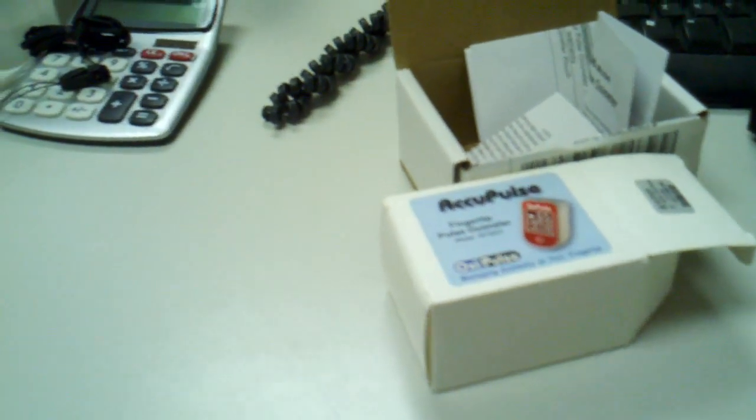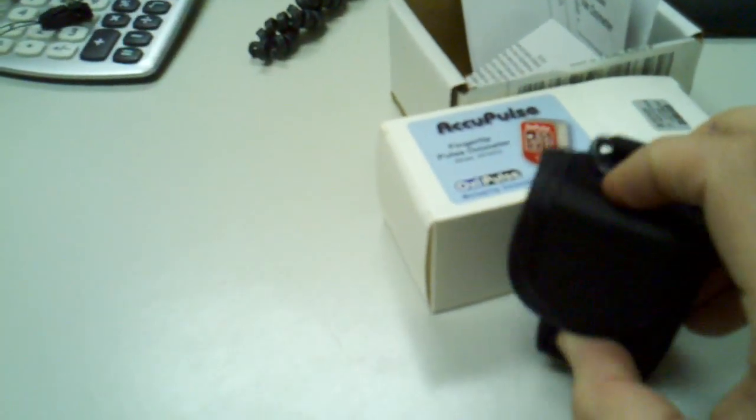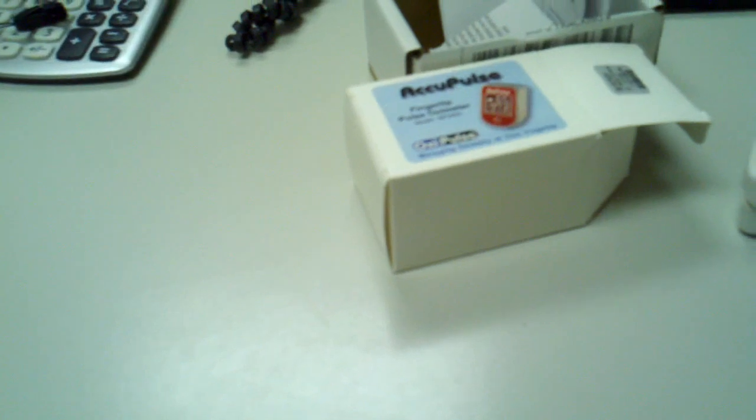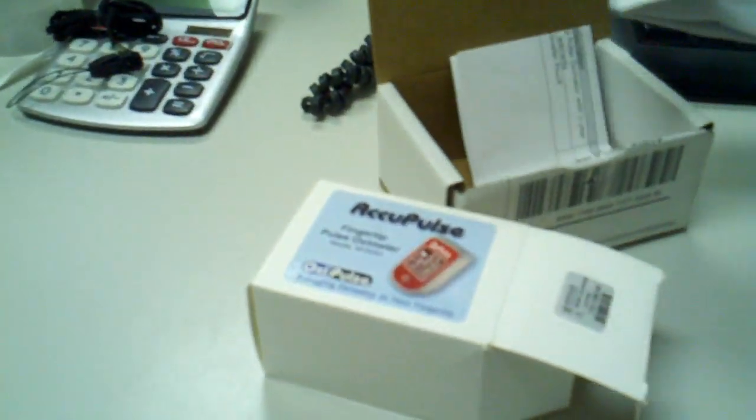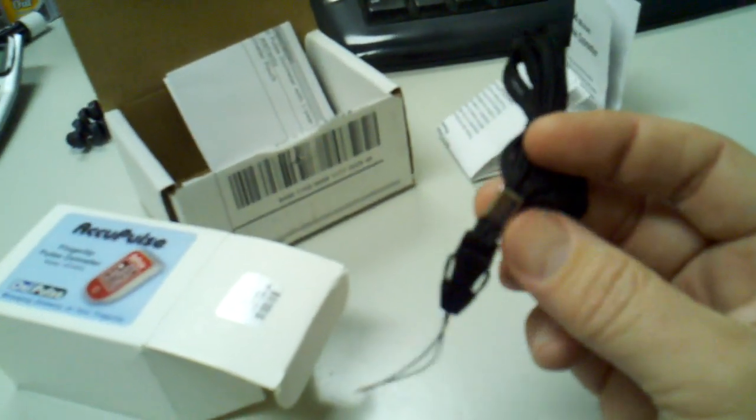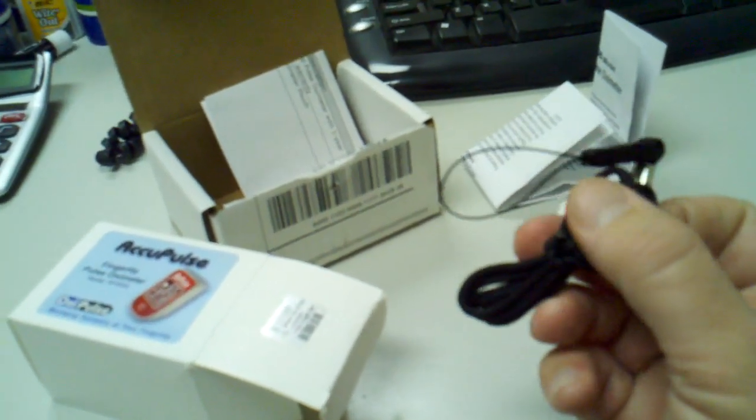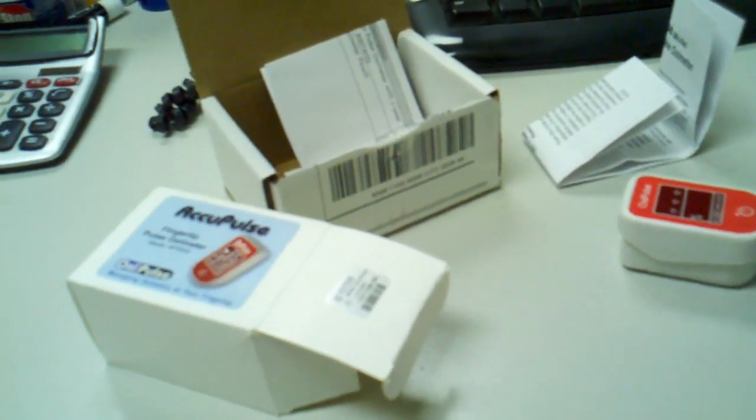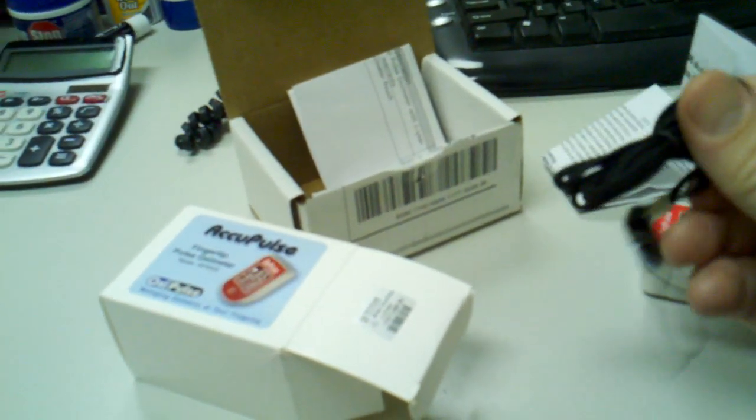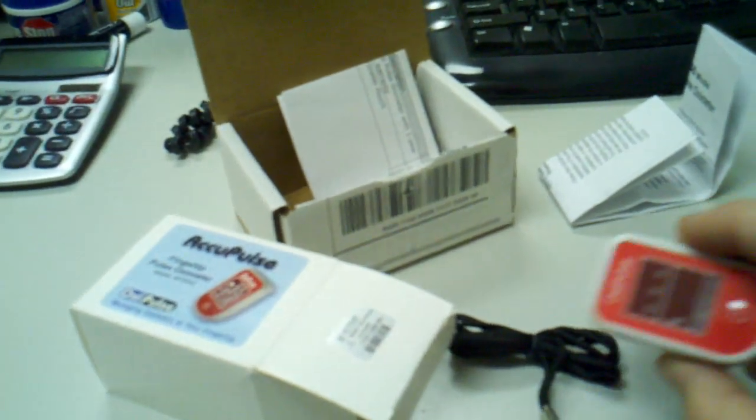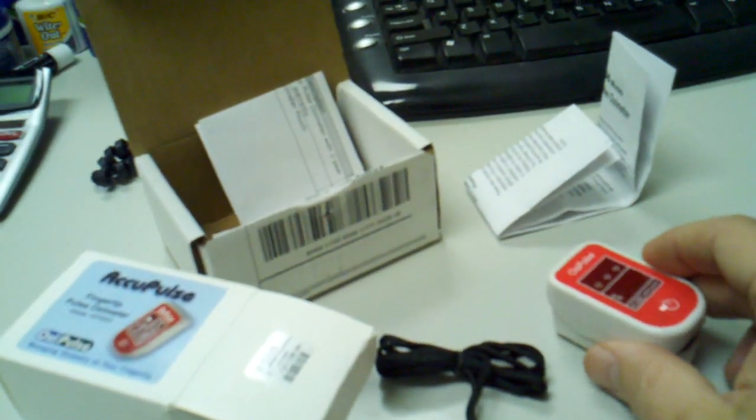It's as easy as it gets. It also comes with a nice little leather pouch. If you want to wear it around your neck, which some people like to do, all you do is string it through there, and then you can put it around your neck so you can test at all times.